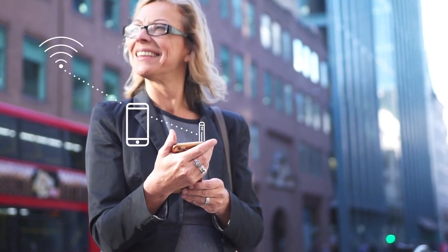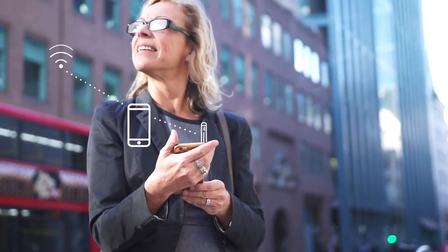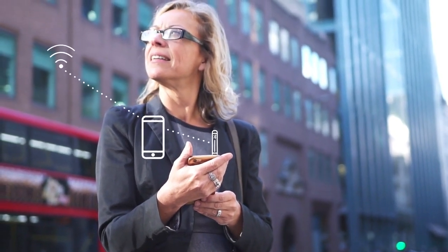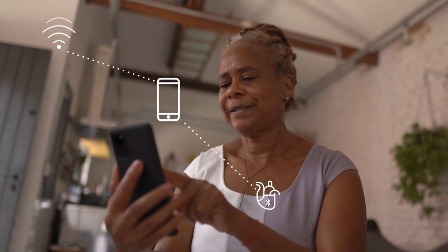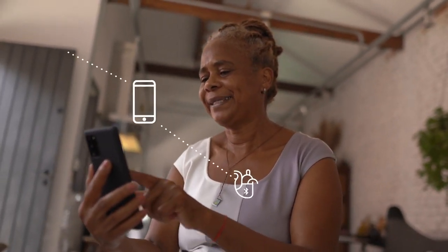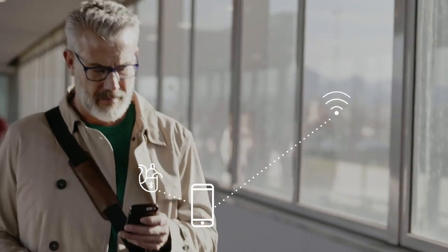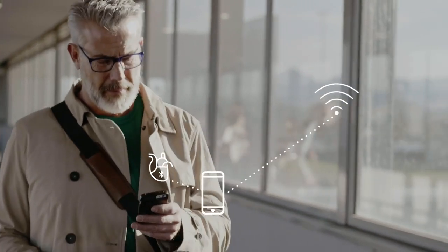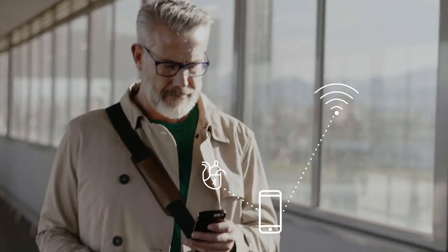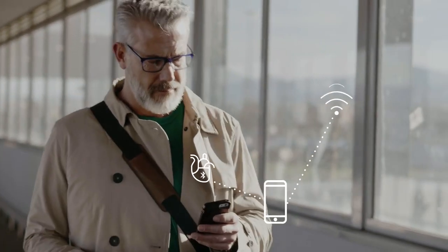Congratulations! Your heart device is now paired with the MyCareLink heart mobile app. The MyCareLink heart mobile app is designed to give you greater freedom, convenience, and peace of mind. Continue with your daily life knowing that your heart device is connected to your clinic wherever you go.